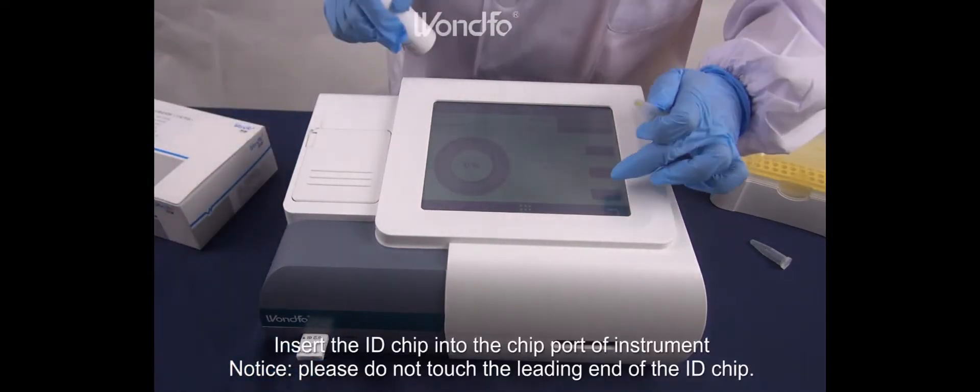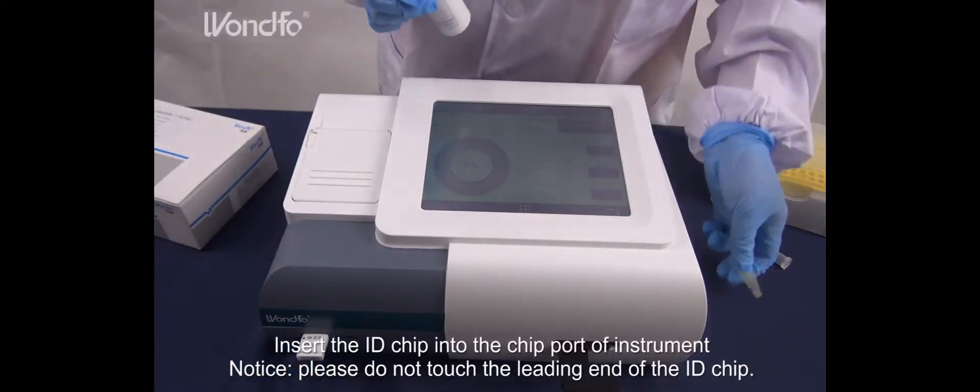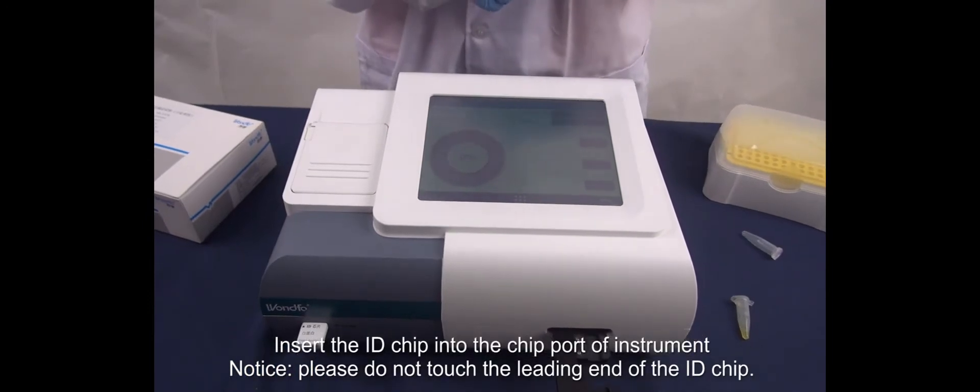Insert the ID chip into the chip port of instrument. Notice, please do not touch the leading end of the ID chip.